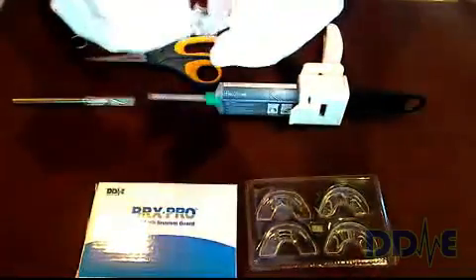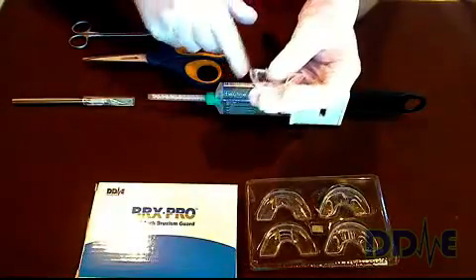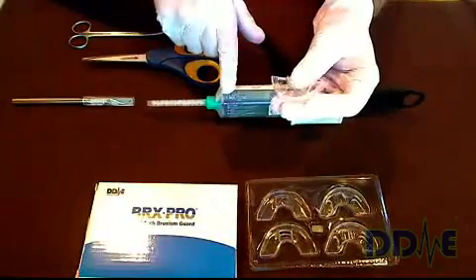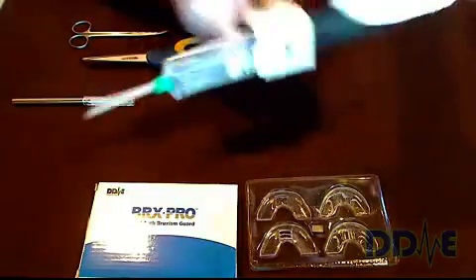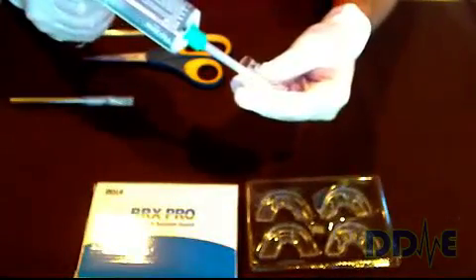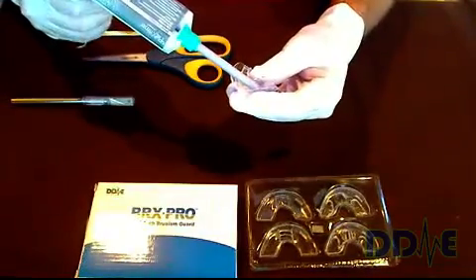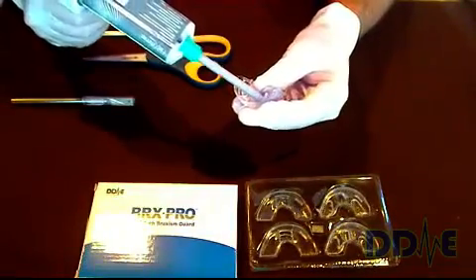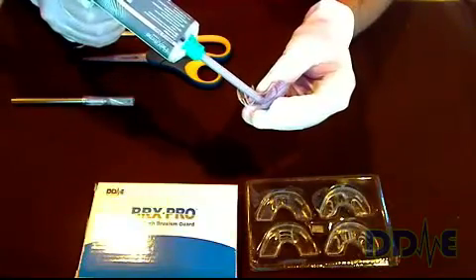The tabs secure the insert on the therapy tray. I'm going to go ahead and fill this tray with PVS material. The material I like to use is called Flexi-Time. The reason I like it is it's durable and easy to work with, especially when we're trimming these inserts in just a moment. Although we've tested several types of PVS material and they all seem to work well.